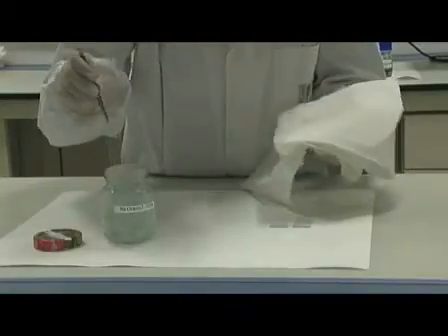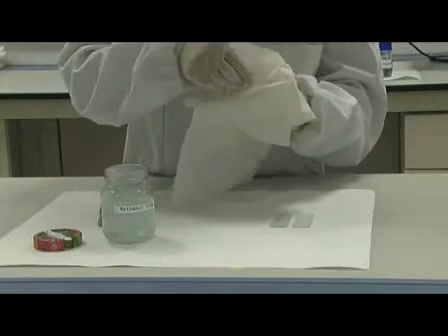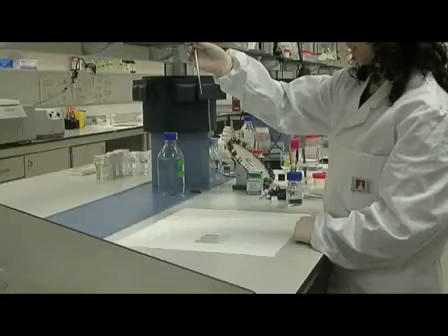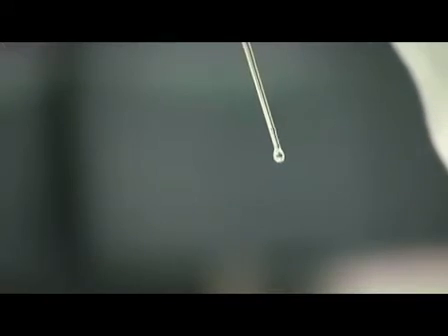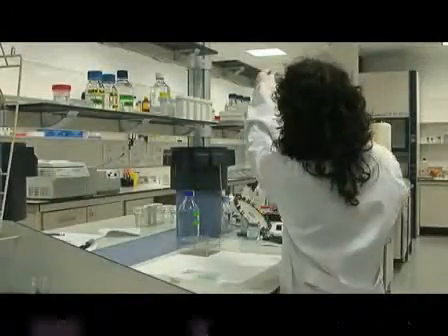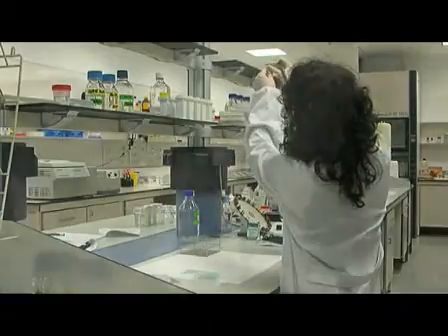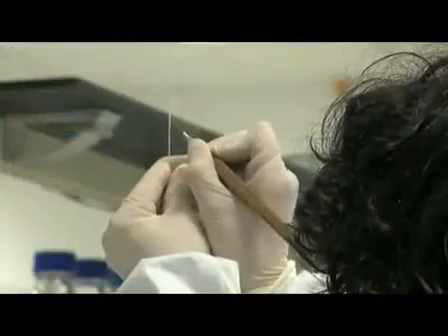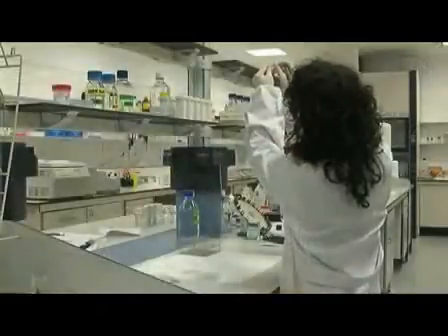The final step is to make the extensions by dropping the fixed sample onto ungreased slides stored in methanol at minus 20 degrees C. It is helpful to delimit the area of the slide containing the sperm extension for prospective relocalizations. This can easily be done using a diamond pencil on the other side of the slide.